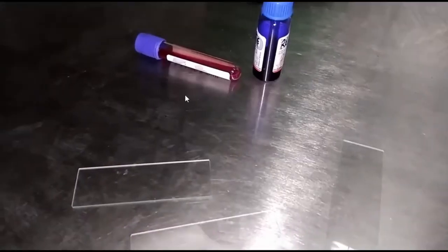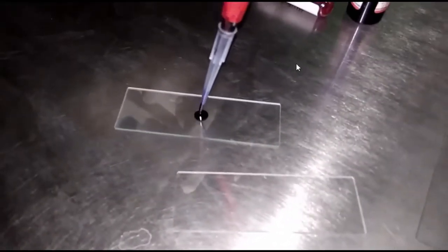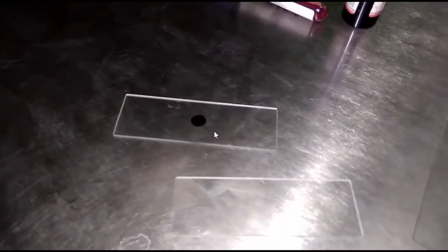So here we have taken 100 microliter blood and 100 microliter methylene blue. Mix properly. Now put a drop on this slide and a small drop on this slide.